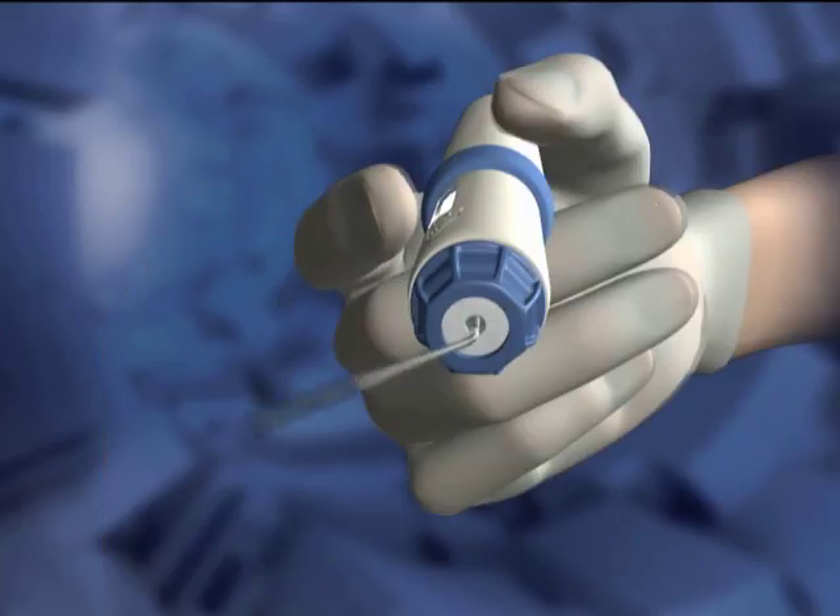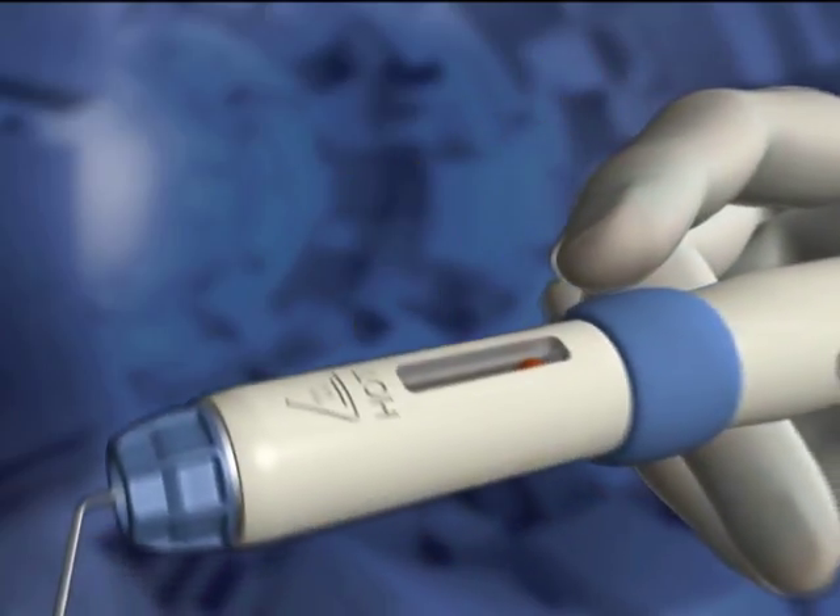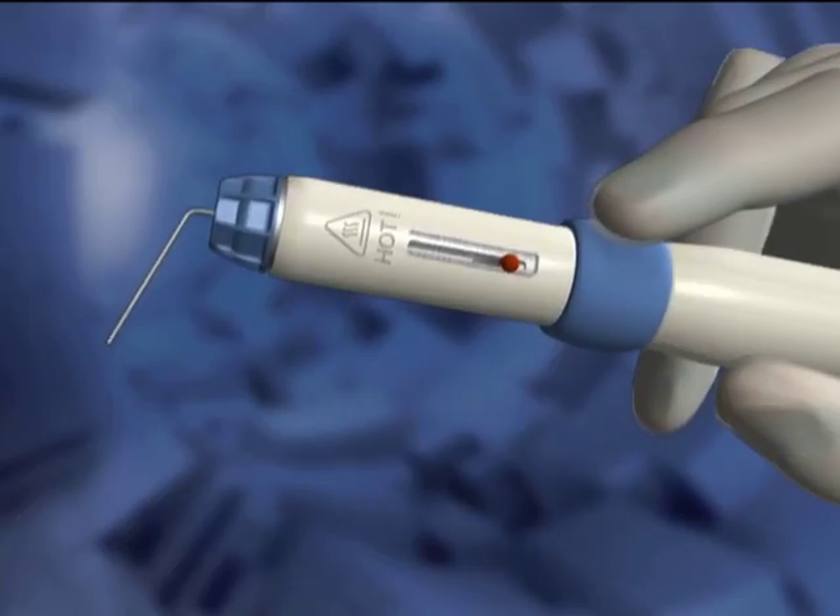When the nut is loose, the Calamus needle is easily rotated in the handpiece. This will allow easy reach nearly anywhere in the mouth.